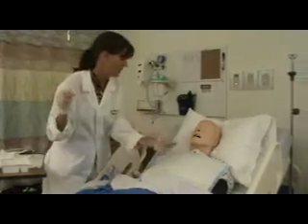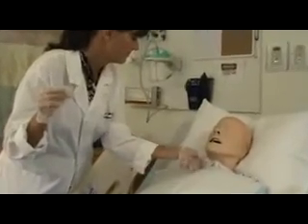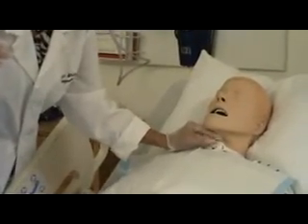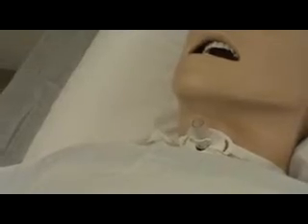And then I'm going to put it back in, and it will snap in place. I'm going to zoom in on that — check that out in lab.